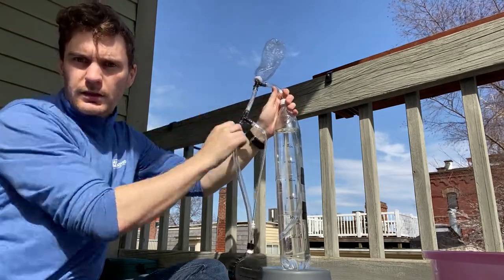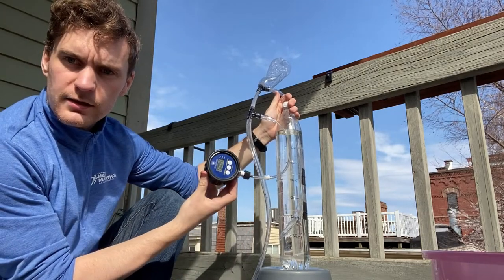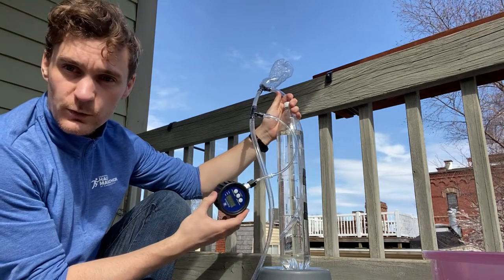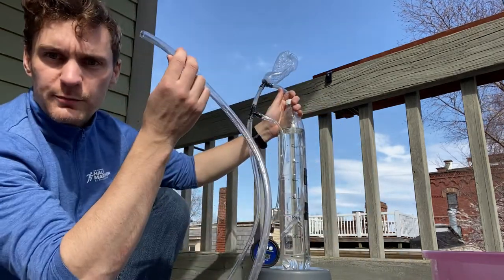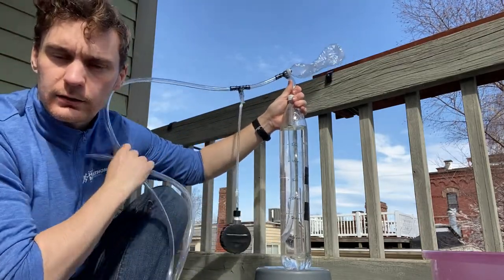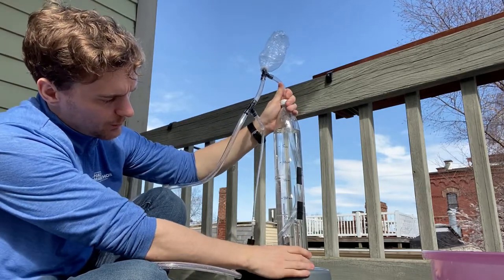The water level is at the top — five centimeters, ten centimeters, fifteen, etc. Here is my fake lung just at the top. I've got a pressure transducer plugged in just for calibration. This is just to prove the principle is working. The pressure source is in parallel with the lung.